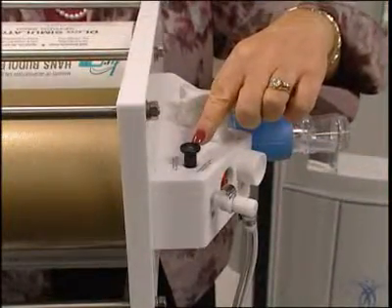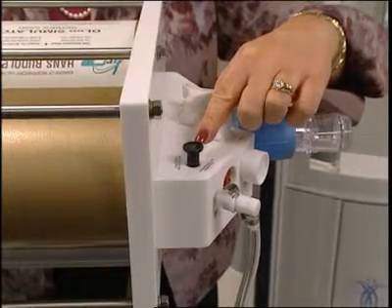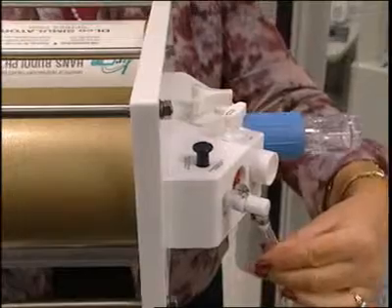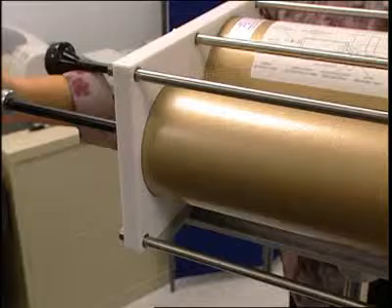Directly above the gas connector port, on top of the manifold, is a small black-button valve. If the alveolar gas is connected to the simulator at the gas connector port, pressing the black valve allows gas into the small syringe.